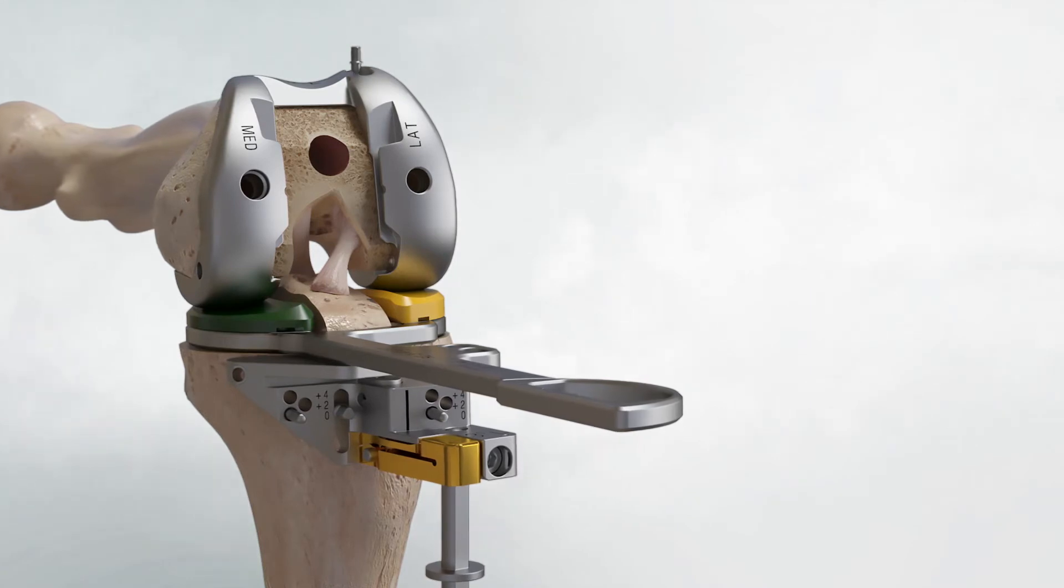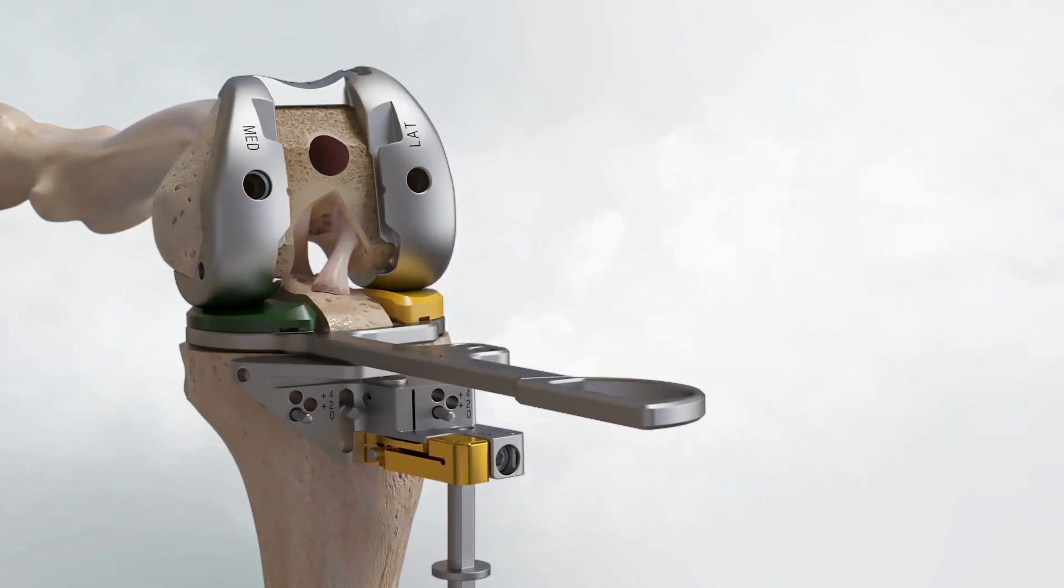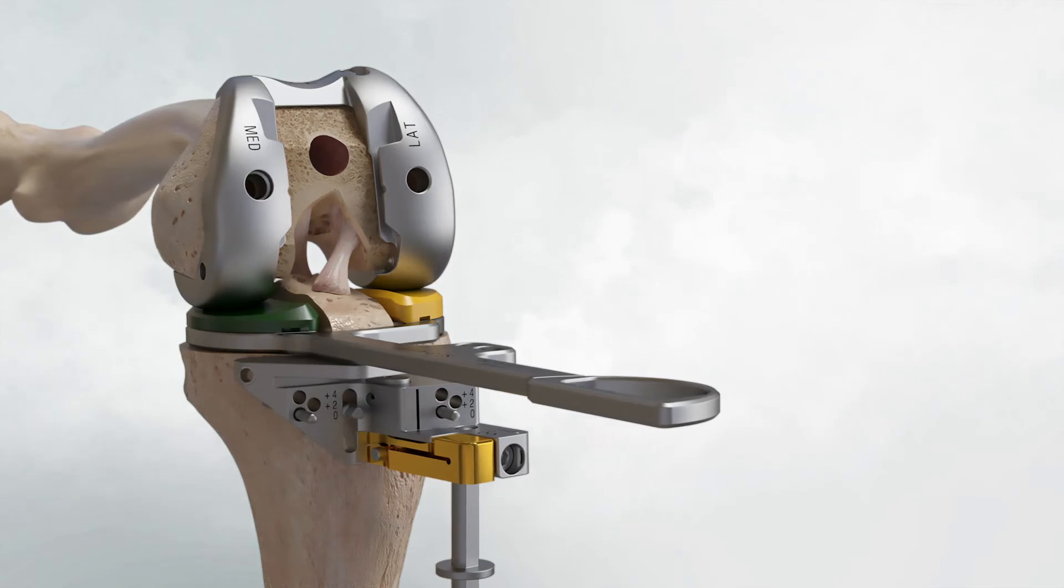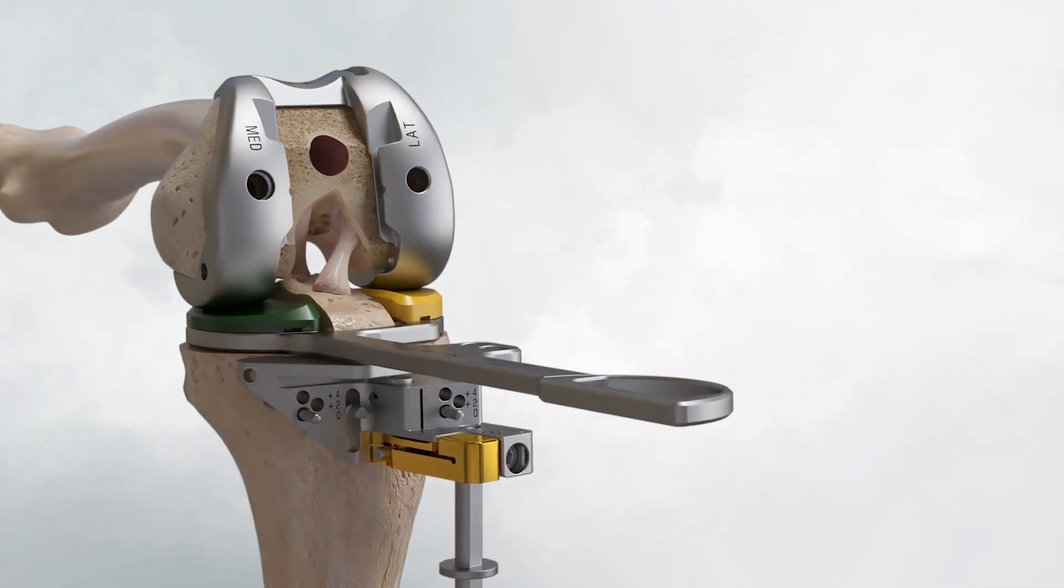In the rare event of imbalance at this step, the same recut and implant options are available as during the medial tibial balance step.